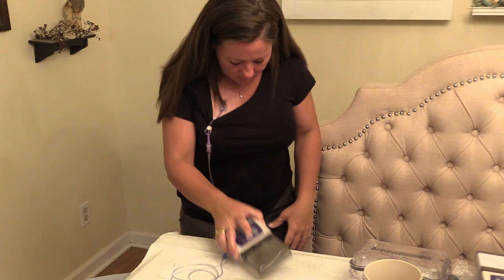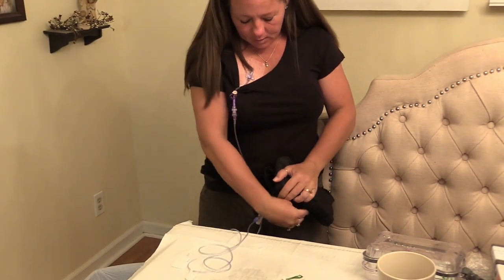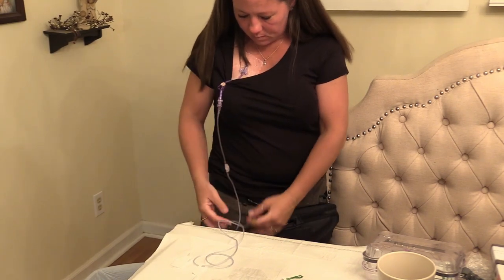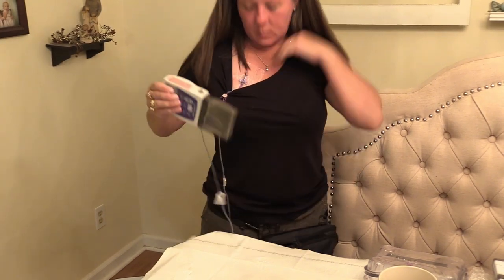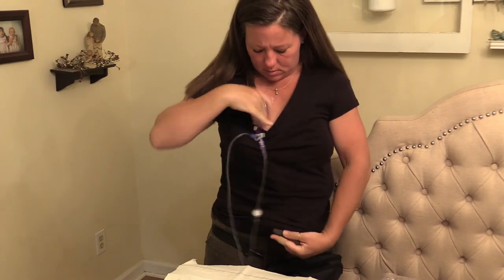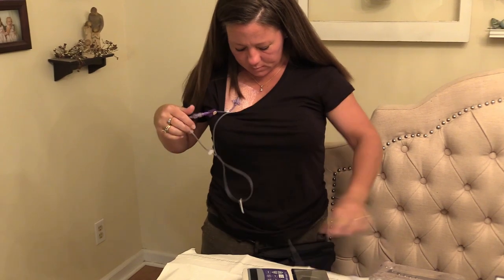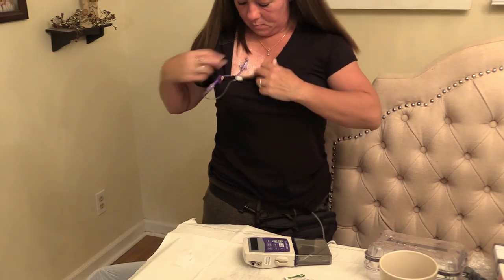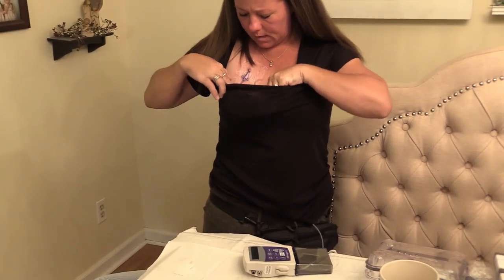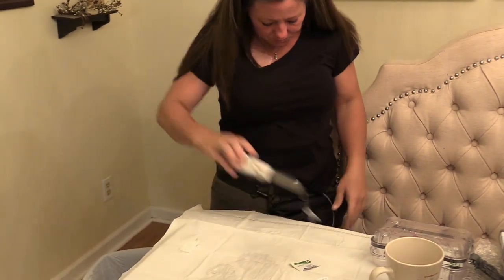This is the nice little pack — put it in there. They do sell those packs, but you can also buy them on Etsy or eBay. Just look for whatever pump you have — I think hers is the CAD Legacy one. But she doesn't care about that because the benefit she's getting from it helps, so it doesn't really matter.